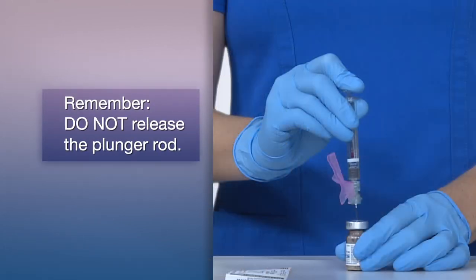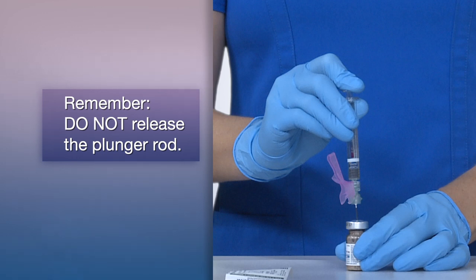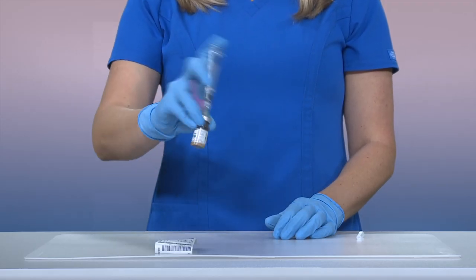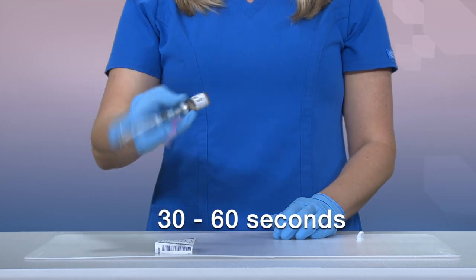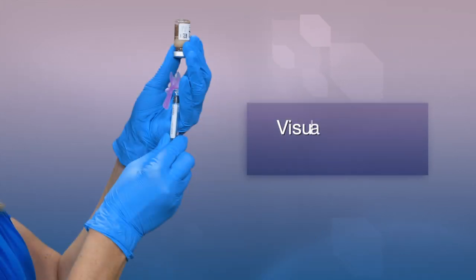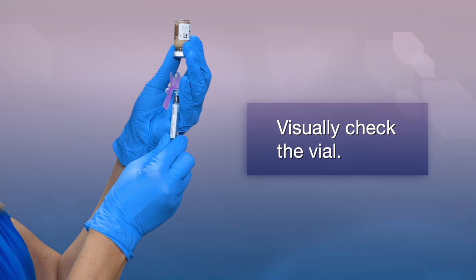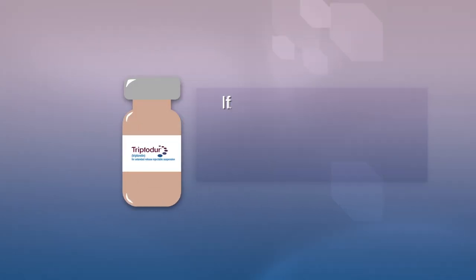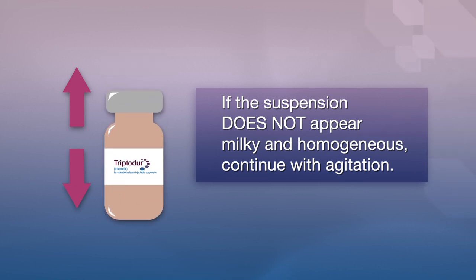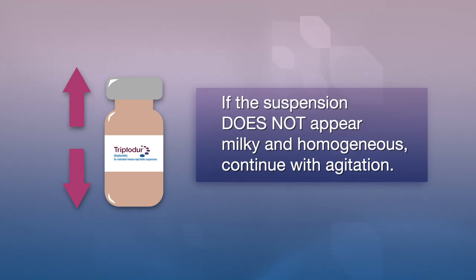Do not release the plunger rod during this step. If the syringe plunger is not maintained in position, it will naturally withdraw product into the syringe. Next, thoroughly mix the vial with agitation for 30–60 seconds, ensuring the diluent rinses the sides of the vial. Before moving on to the next step, visually check that the suspension appears milky and homogeneous without any visible aggregates or precipitates. If the suspension does not appear milky and homogeneous, continue with agitation. An up and down agitation can also be used to help eliminate aggregates or precipitates.